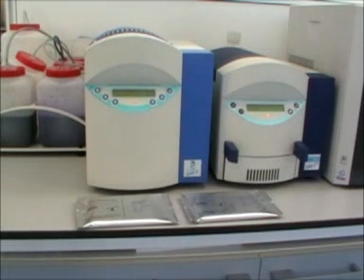Although isoelectric focusing and globin chain electrophoresis are also available, this video concentrates on the analysis of haemoglobin variants by electrophoresis and uses the Helena Biosciences system.